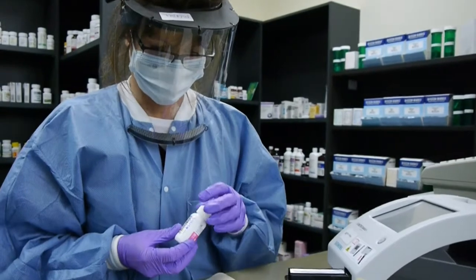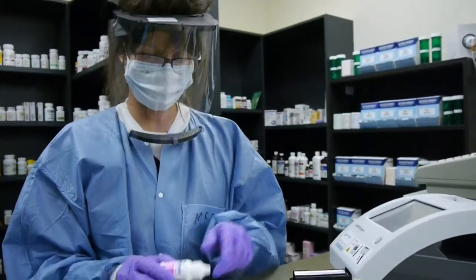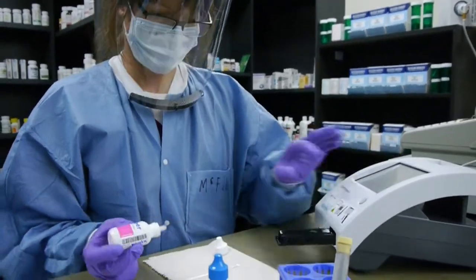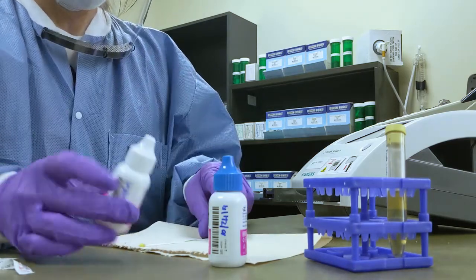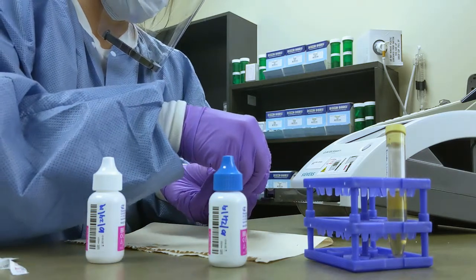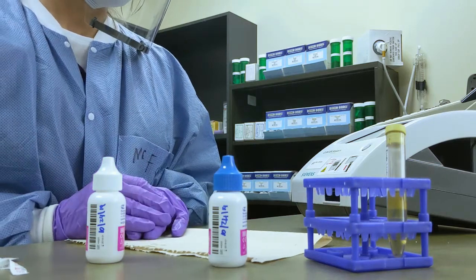You still need to go ahead and tell the computer what test you're going to do. Just a drop on the end there. So you just put it on and you'll take it in.